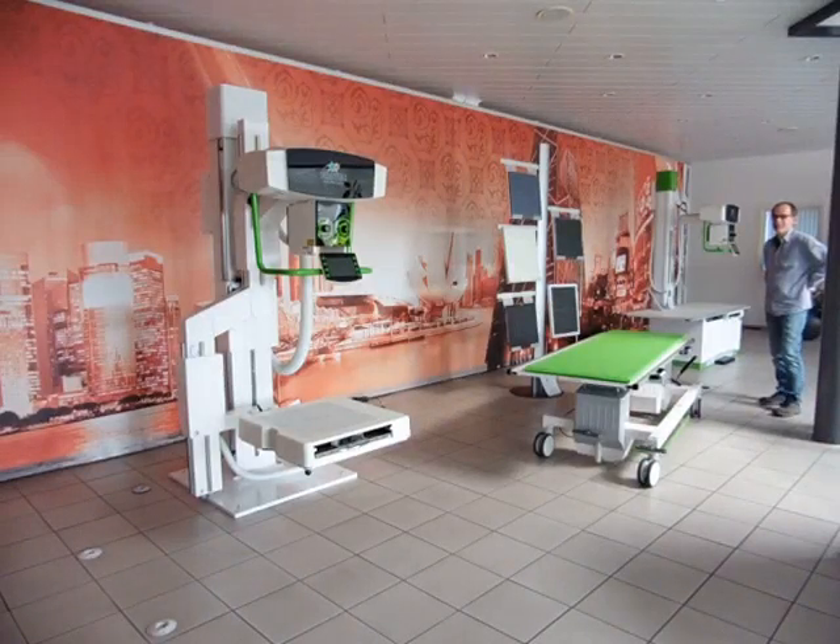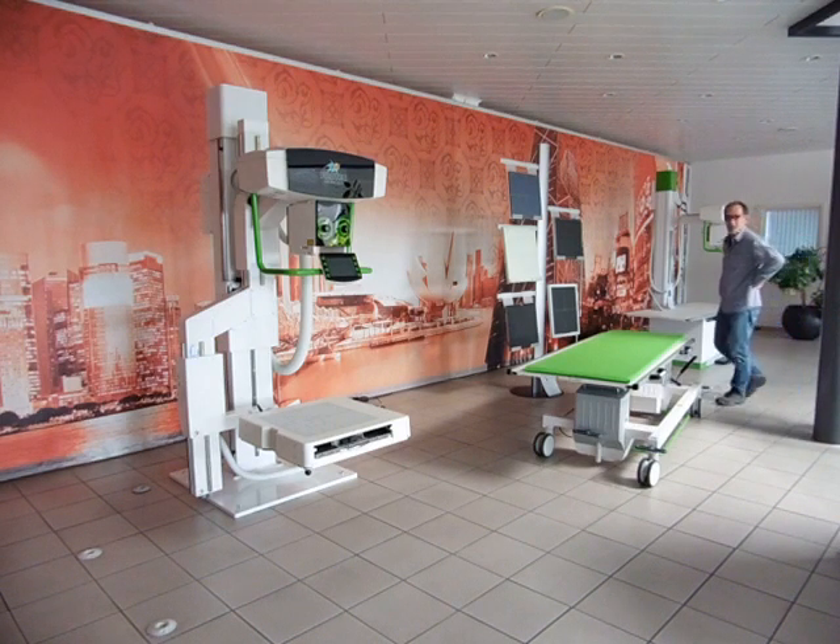You can see here our Prognos XPE AccuTable, which has the same functions as our normal Prognos XPE, but this one works with batteries and there are no cables in the way.